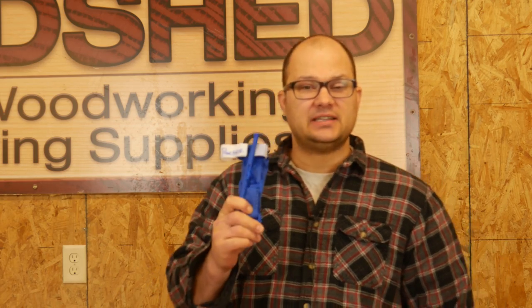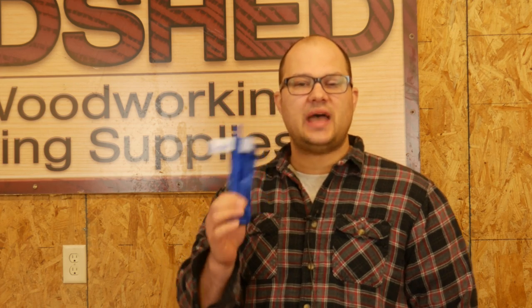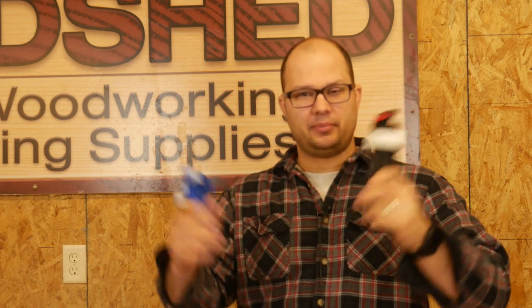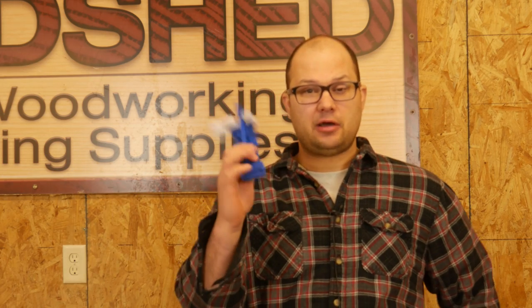These are fantastic for buying to practice. So if you have some nice tourniquets — if you don't, get some. And if you do and you want to practice, just buy a $6 or $7 cheap one on Amazon and use that as your practice tourniquet. Then you preserve your nice tourniquet from wearing out, getting damaged, getting torn, and getting beaten up. And you can basically have it for most of the rest of your life. That's how I teach classes right now — I use all my cheap practice tourniquets because I don't care what happens to them.